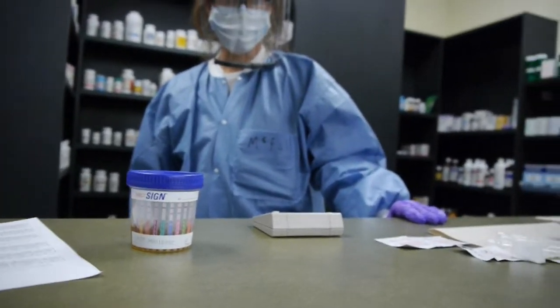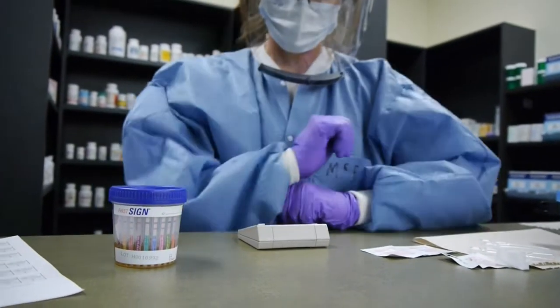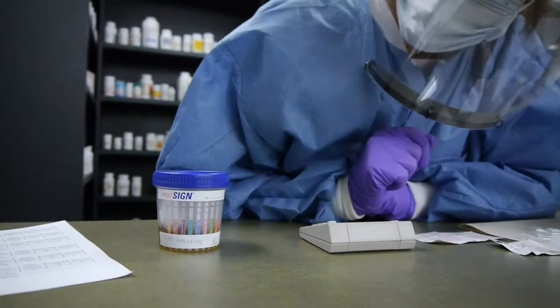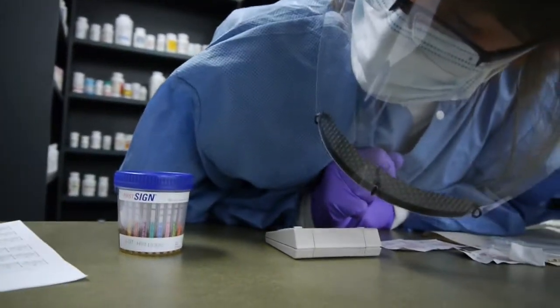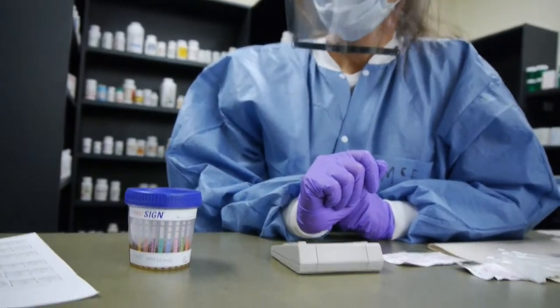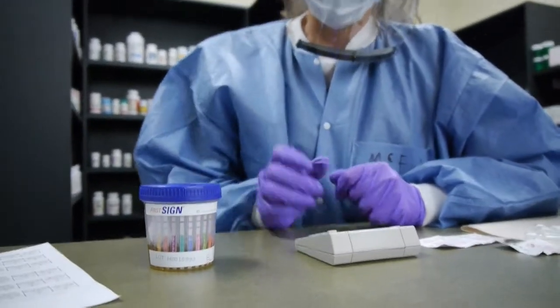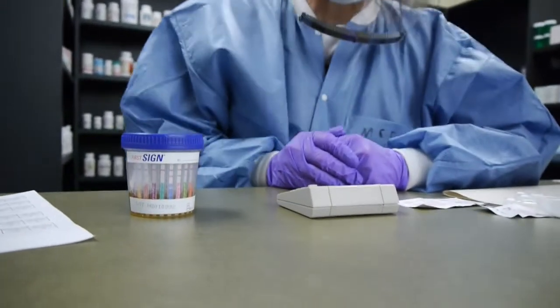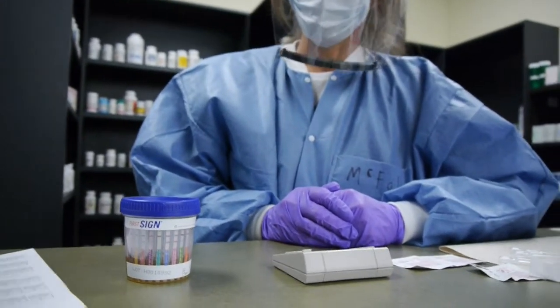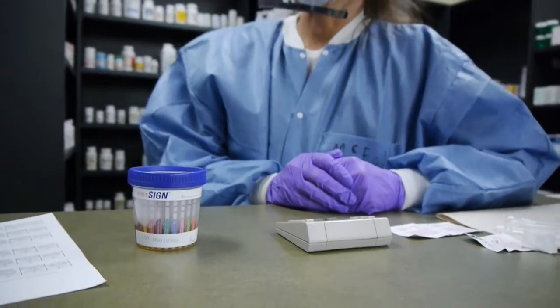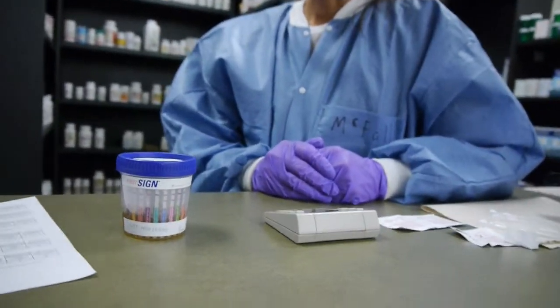This is a combination of clinical samples, so people in the hospital are on various medications. That doesn't mean they're abusing it, this could be just their prescriptions. This test does not distinguish between prescription and drugs of abuse.